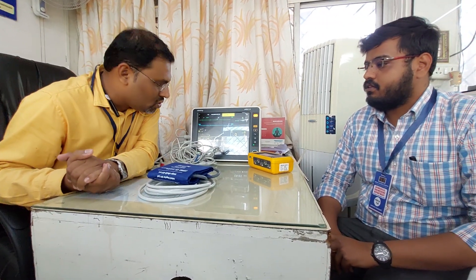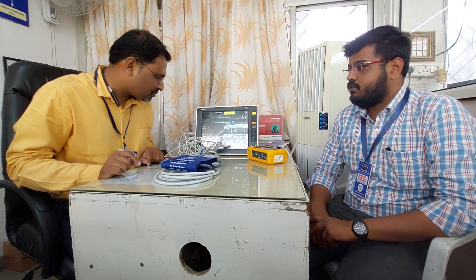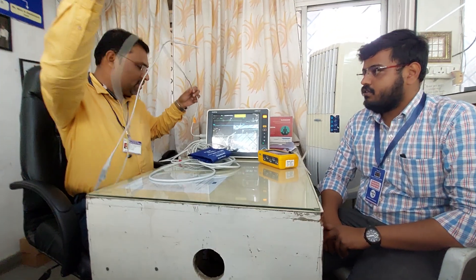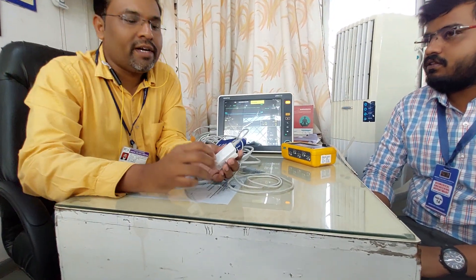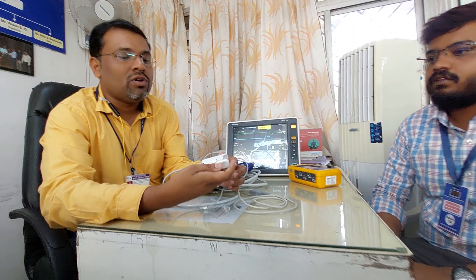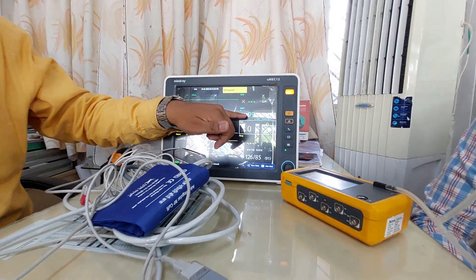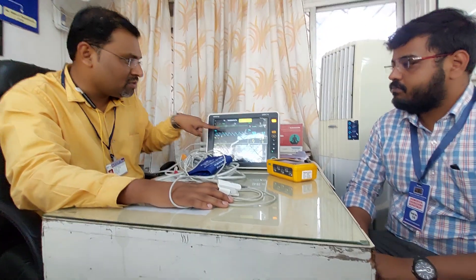We will see how to calibrate SPO2, ECG, and NIBP. First, I will show how to calibrate SPO2. For measuring SPO2, we measure the percentage of oxygen inside the body. The monitor comes with an SPO2 probe with a finger-like structure. I am putting my finger inside this probe — it is now showing 99% SPO2, which means the machine is working. Now I will check it using the SPO2 calibration tool.